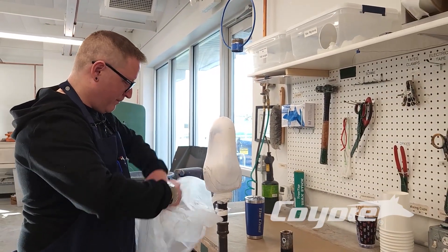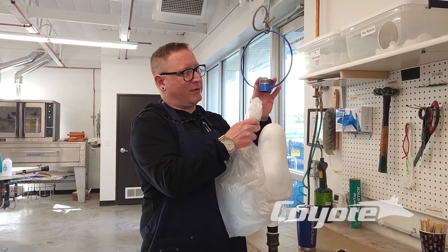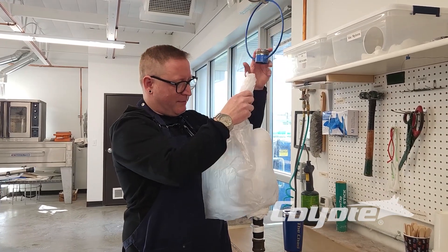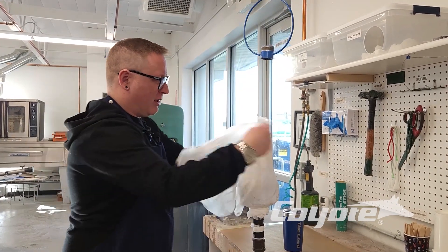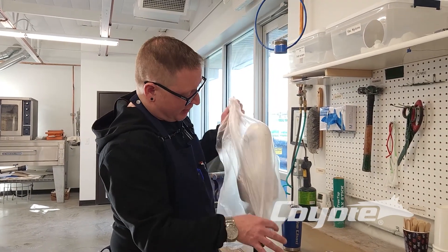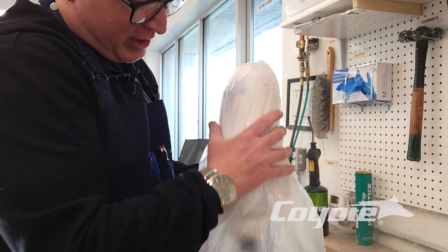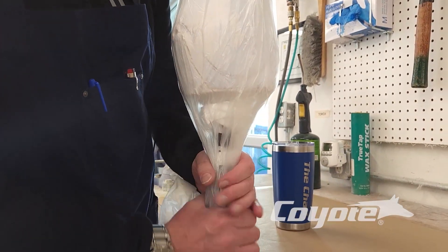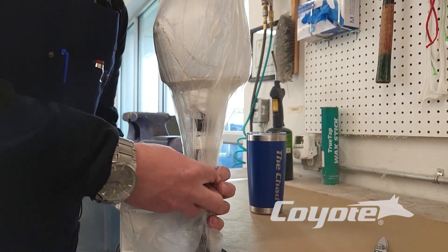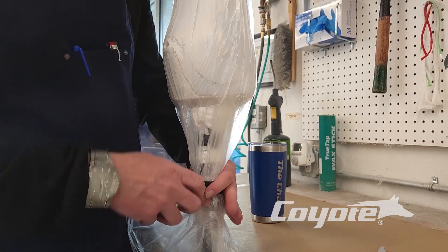The Coyote here is a 2-2-2. And then for our outer vacuum bag, which would be tied into one of our — we call these bird cages — we can tie it up here and then we can dip our resin in. Today we're just going to demonstrate how we get our outer vacuum bag. So the first one has the vacuum in it currently. Then we've got our lamination. And then we pull our second one and we just drop below our second vacuum line here. We do our tie-off as we would standard.